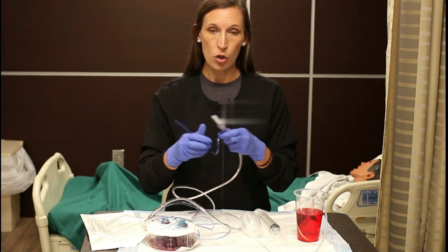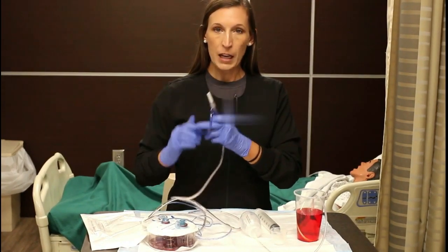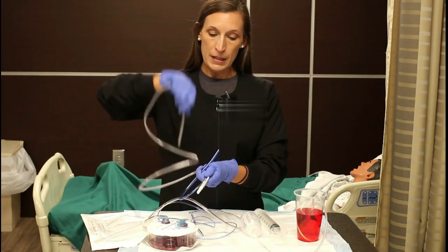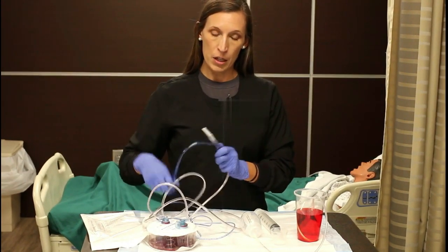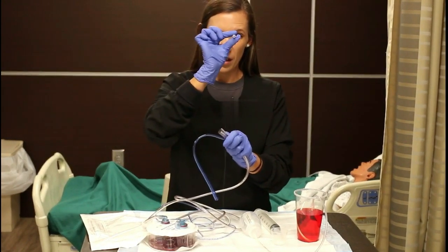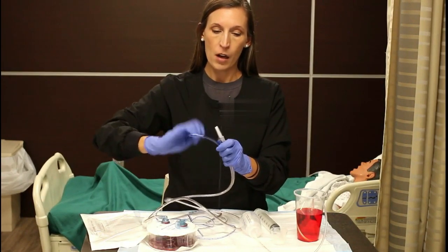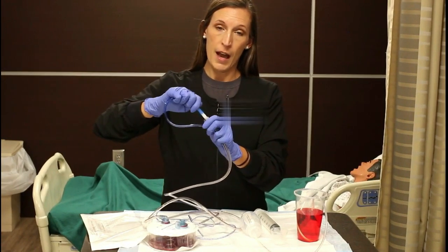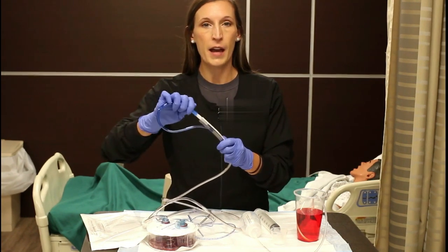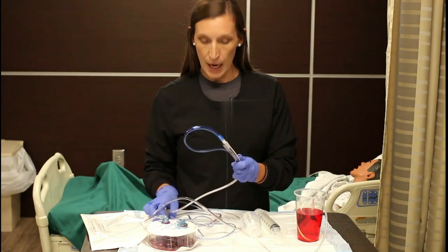This is also why we position the tube above the patient's stomach — because of gravity. If we had it below, then stuff in the stomach would come through the tube and go up and out of the pigtail. That's why we keep it up high. This part is just a connector piece. It is open and it just helps things stick together. You can put your suction tubing on top of that, or you can clamp off your tube. You always want to start with it clamped when you're putting it in a patient so gastric contents don't come back up while you're inserting the tube.